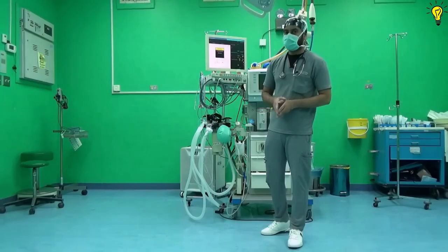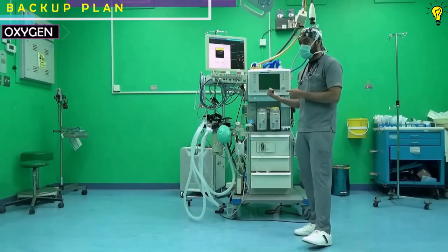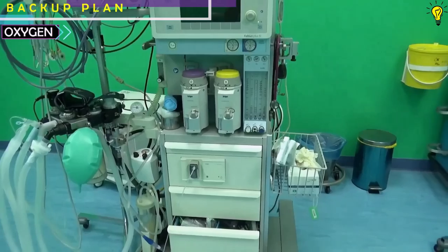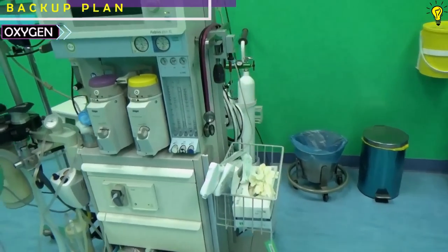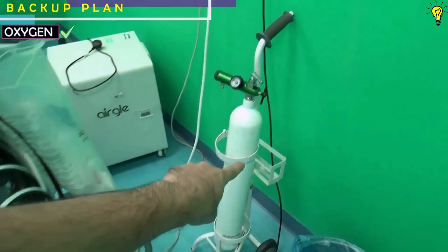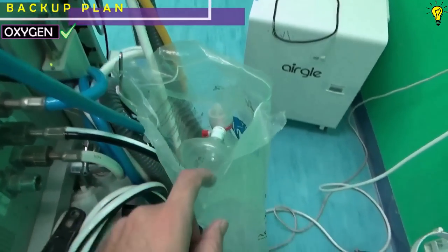Step one: the backup plan. Do you have any backup plan in case the anesthesia machine malfunctions? Remember, for an anesthetist, the main thing is preventing hypoxia. So if the machine malfunctions, I've got right there behind me the auxiliary oxygen cylinder and the Ambu bag.